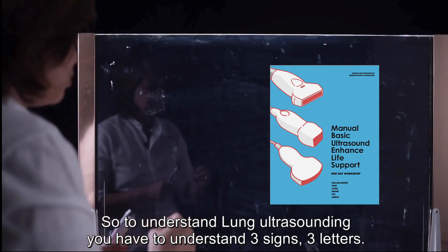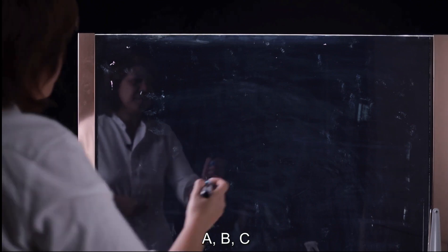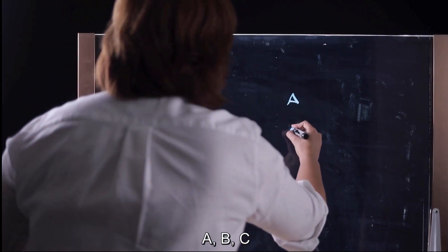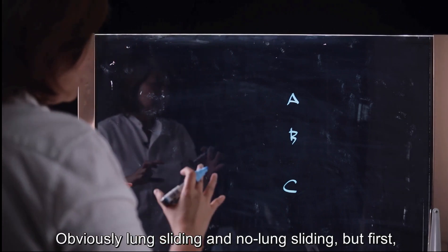So to understand lung ultrasound, you need to understand three signs, three letters: A, B, C.